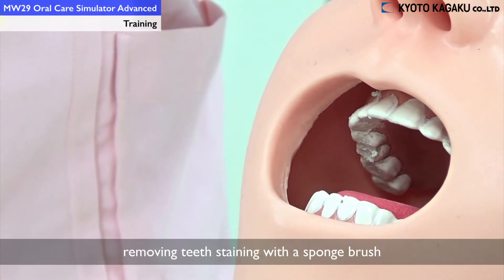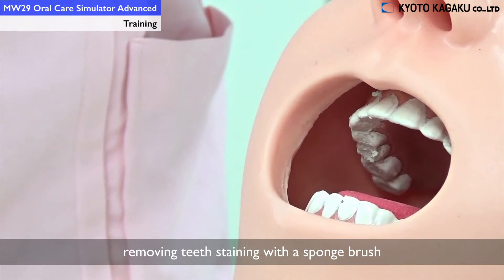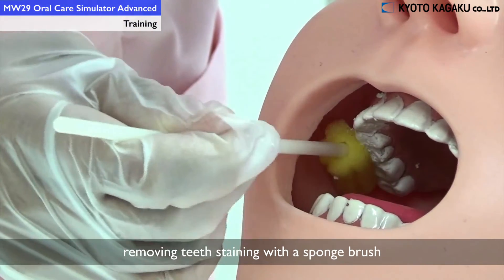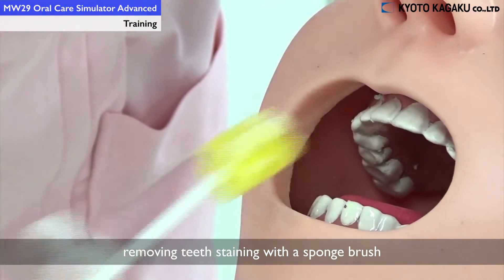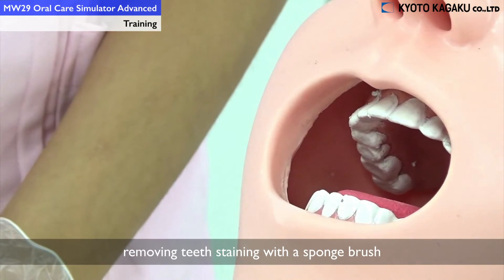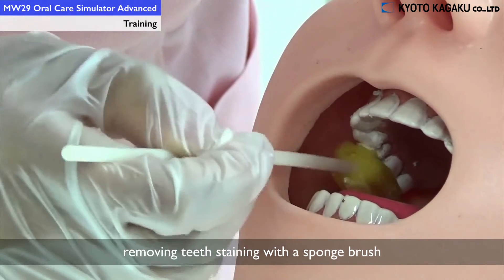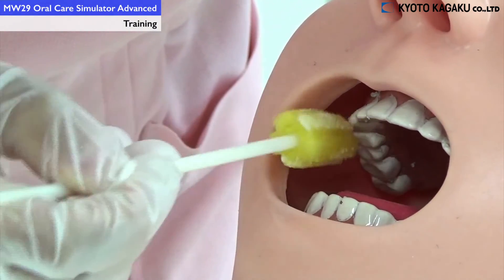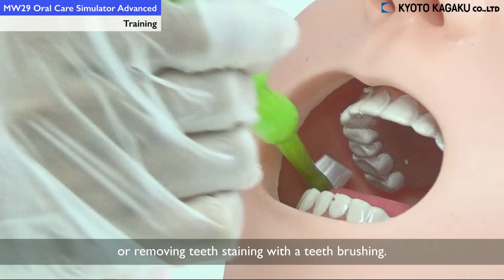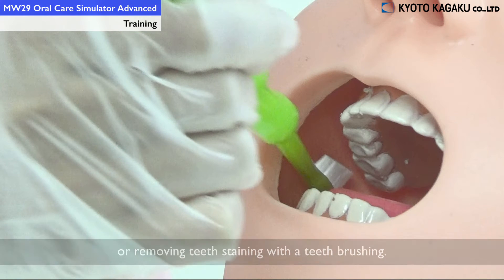You could clean off the residue with a spongy brush. You could also use the usual toothbrush, the same as the sponge toothbrush.